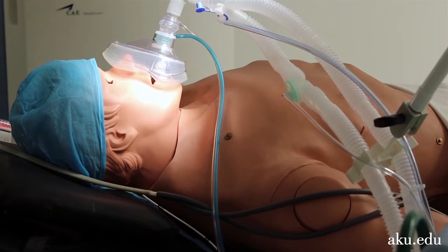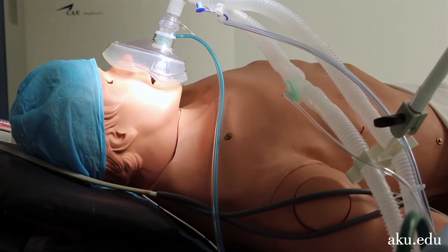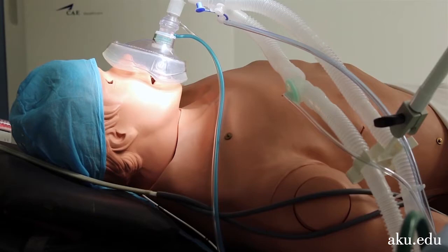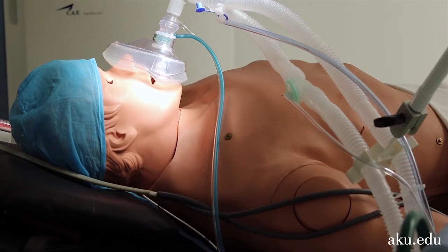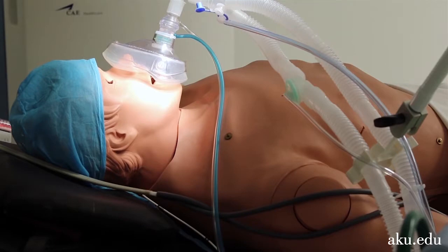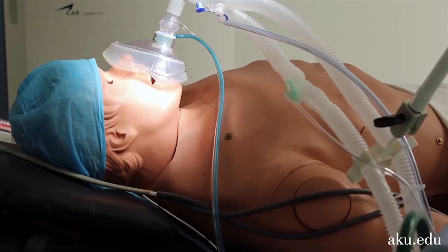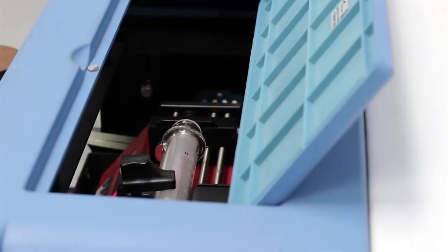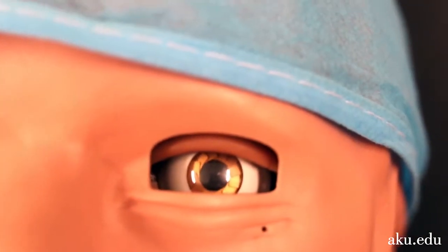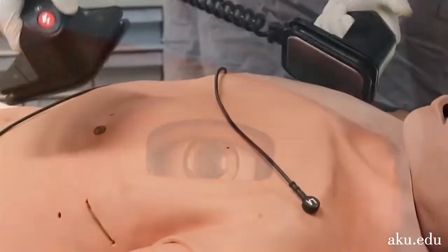Let's explore the HPS clinical features to understand how it facilitates simulation-based training. For example, we can administer anesthetic agents and medical gases to produce neuromuscular, cardiovascular, and pulmonary physiological responses.